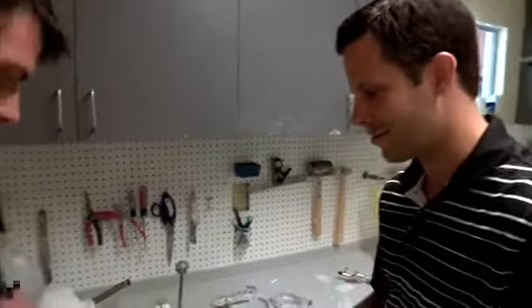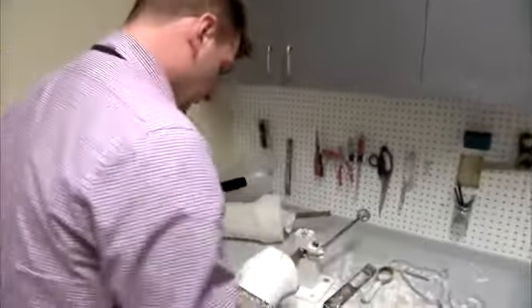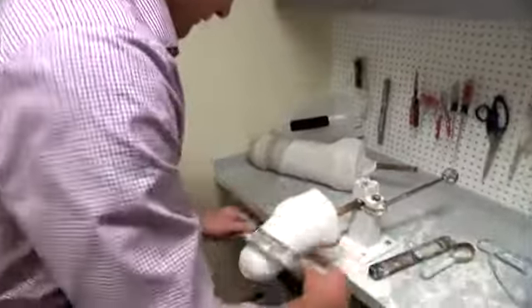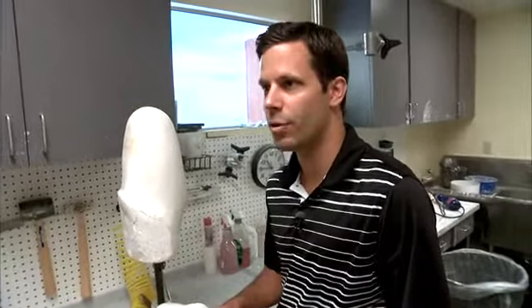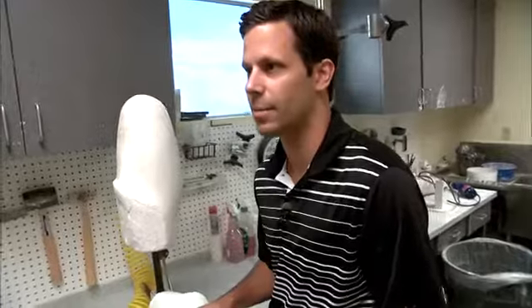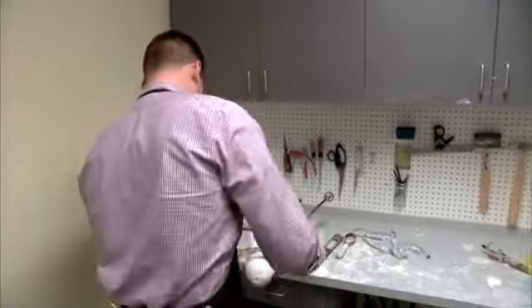Why don't you go ahead and give it a try? I think I got a D in art in high school, so we'll see. Once we've got the mold modified down to our measurements, we're going to take this into the oven room and pull the check socket over the top of it. Oven room sounds exciting — once this gets done, we're ready to go.